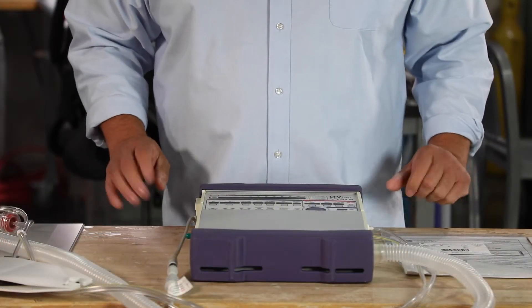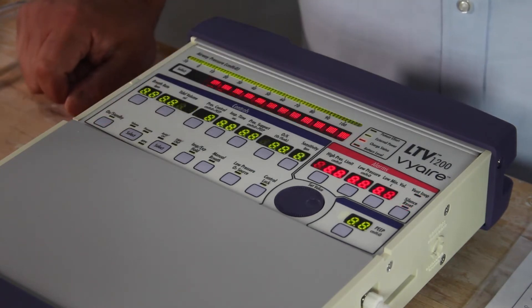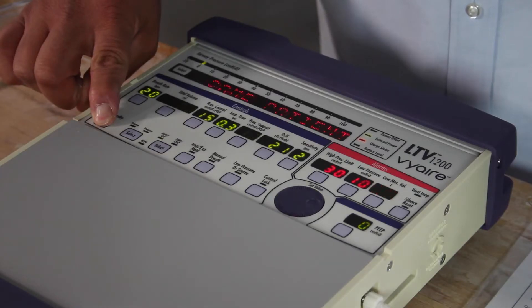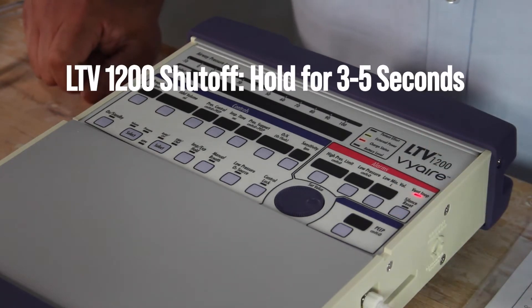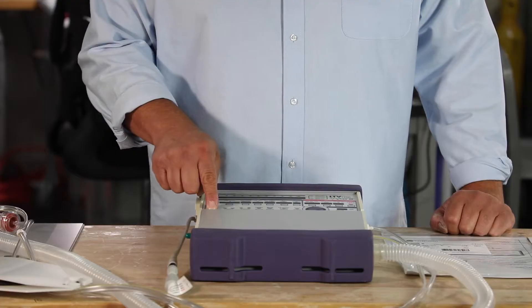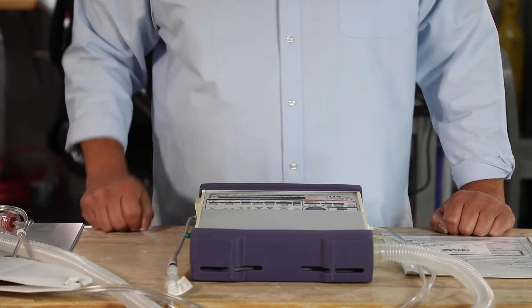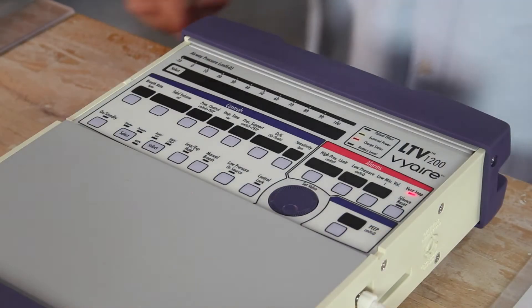Turning the ventilator on and off, simply press the button. One press on standby turns the ventilator on. For safety purposes, you can't press once to shut it off. You have to hold the button down three to five seconds for it to shut off. Silence reset is our safety mechanism, making sure we really want to shut off the ventilator.